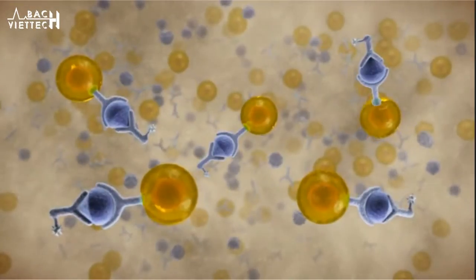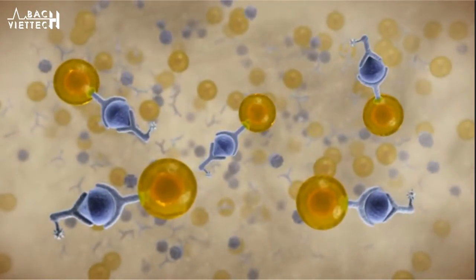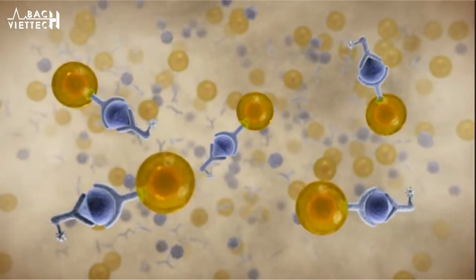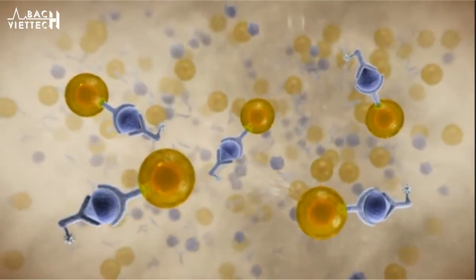Streptavidin forms a strong bond with biotin. The completed immunoassay complex is now ready to be transferred to the measuring cell.